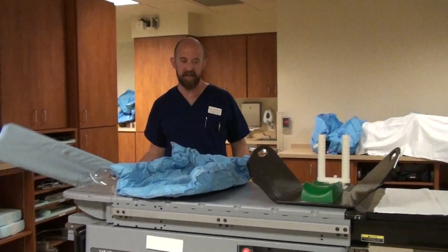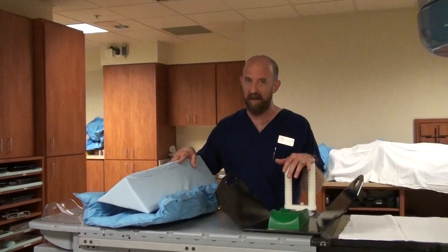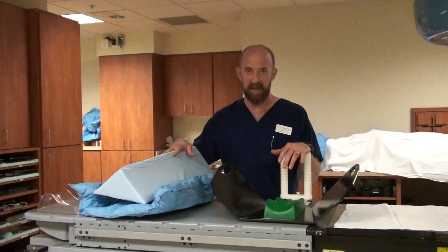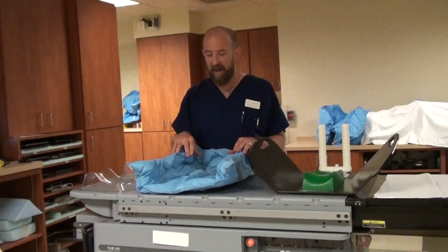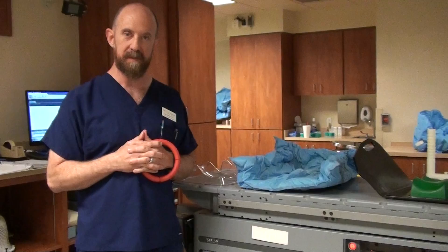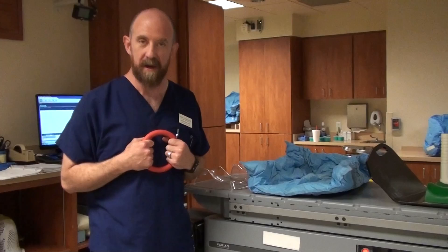You can also have various other devices for comfort and stability. This is a knee rest — it goes under their knees. You'll have a variation on almost all of these devices depending on where you're treating. You can have something as simple as a pillow for the patient's head, or something like a ring to hold on to. If you're treating someone's pelvis, we'll often give them a ring so their fingers don't go to sleep, it gives them something to concentrate on, reminds them to hold still, and gets their hands up out of the way for inferior treatments.